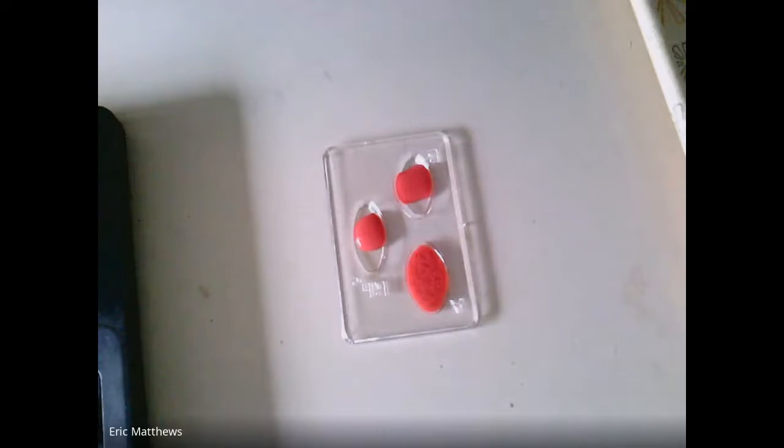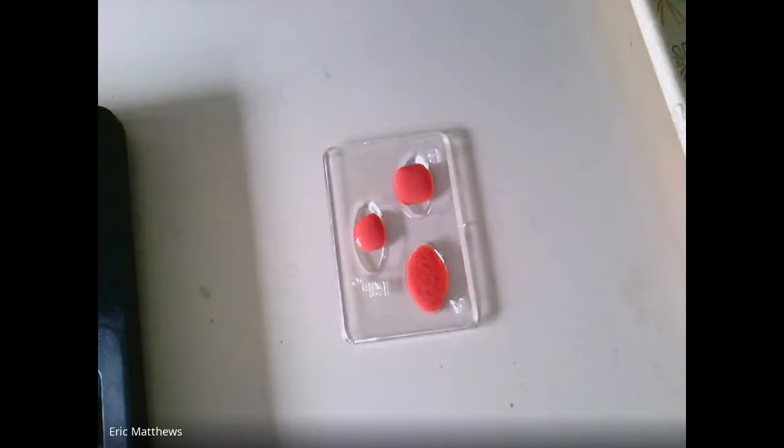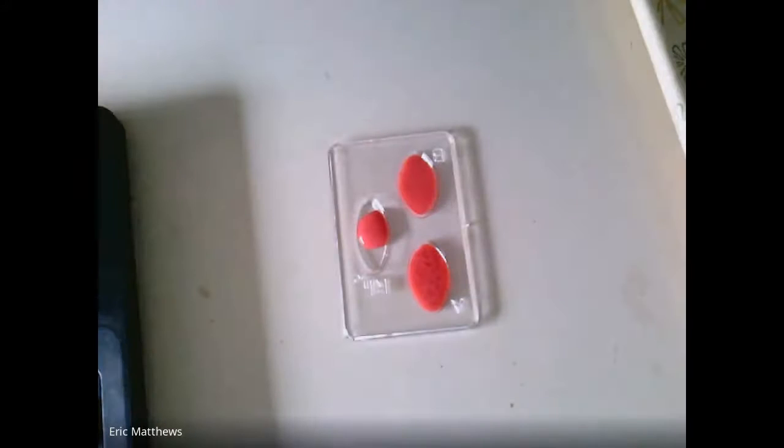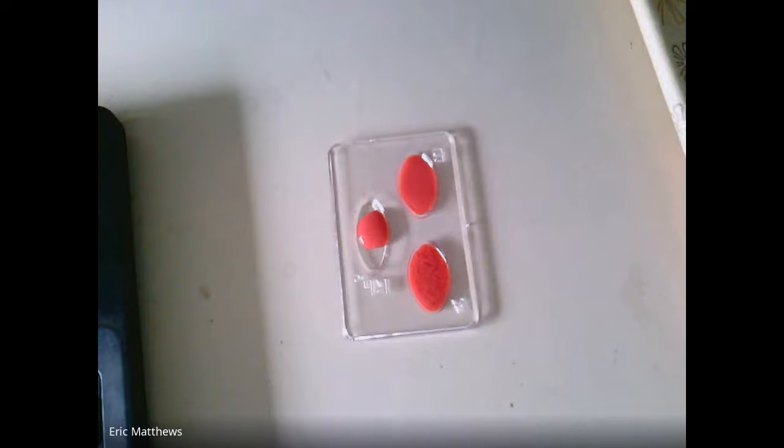All right, then we're going to test anti-B. Now you'll see for anti-B, there's no such issue. We're not getting all that chunkiness that we're seeing there. And then finally, we're going to add RH.